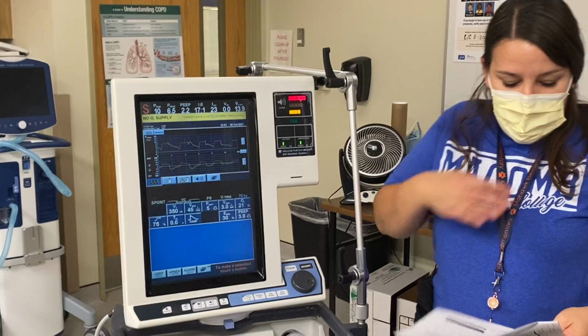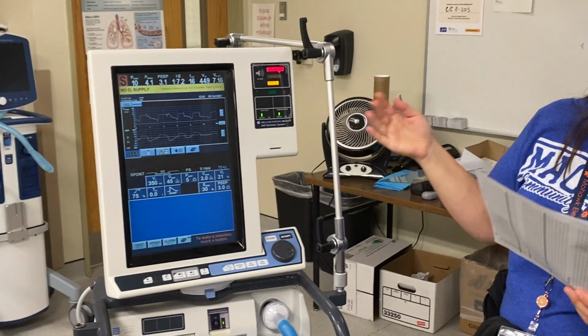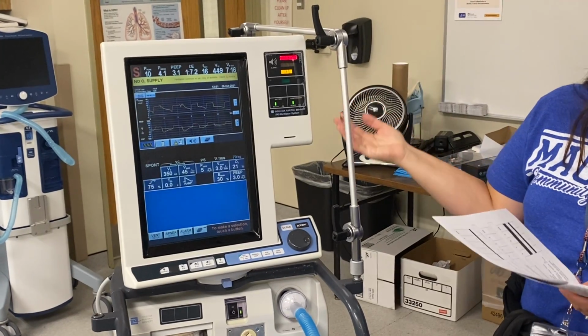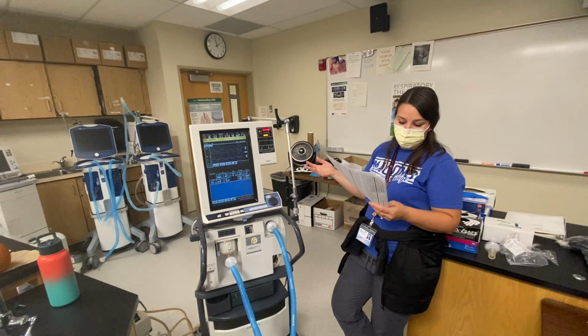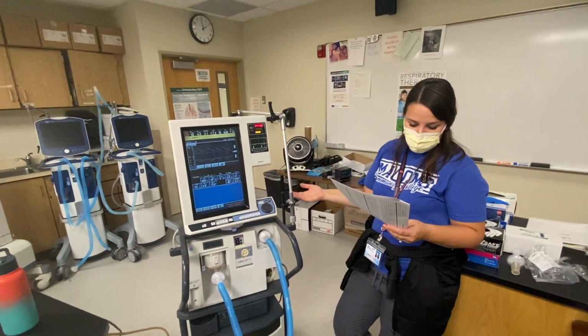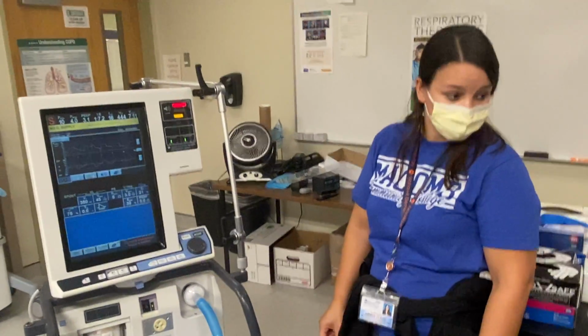Alright. So we'll ask you guys to explain to us why you set the rise time at what percentage you set it at. We'll ask you to set your e-sense and explain why you set it that way. And then we'll ask you some questions.